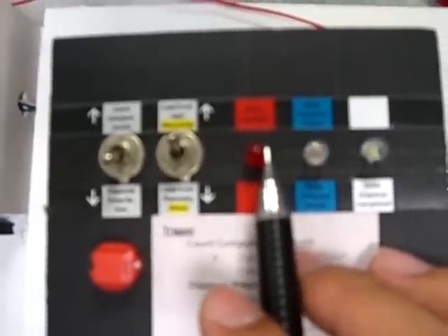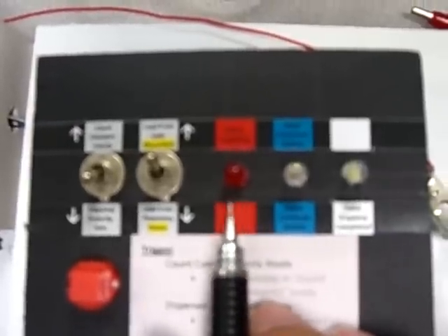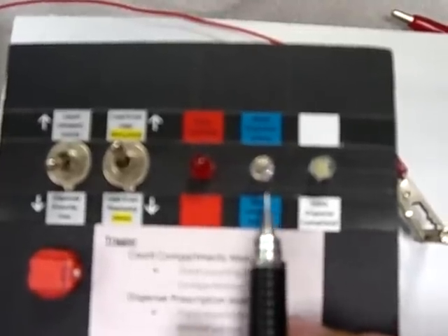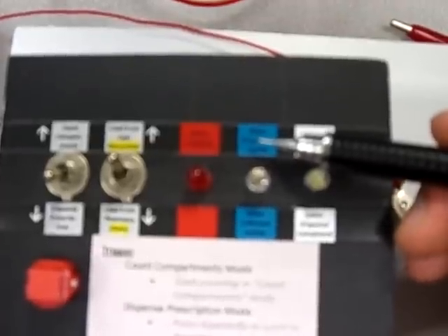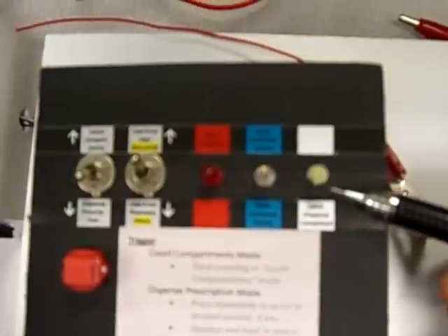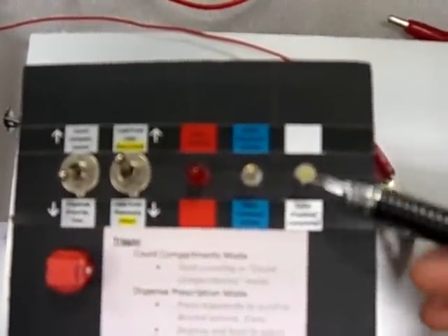The red color LED blinks when the subsystem is counting the number of compartments. The blue color LED lights up constantly when the conveyor is conveying the pill container, and blinks when it has stopped and is waiting for the dispenser to dispense. The white LED lights up constantly for a few seconds after dispensing has been completed.